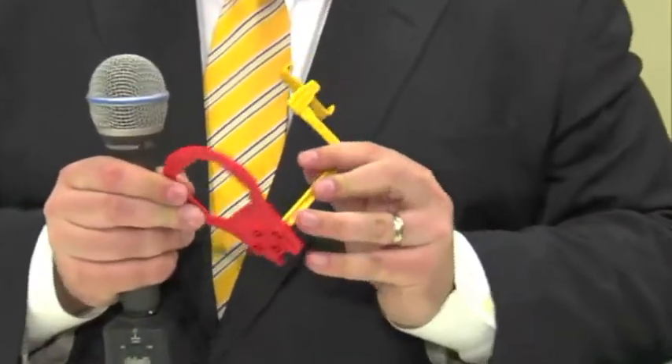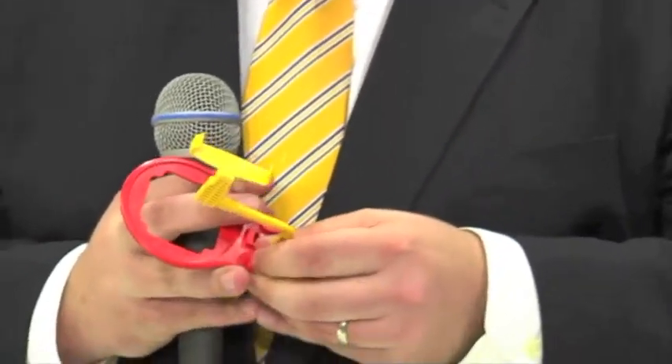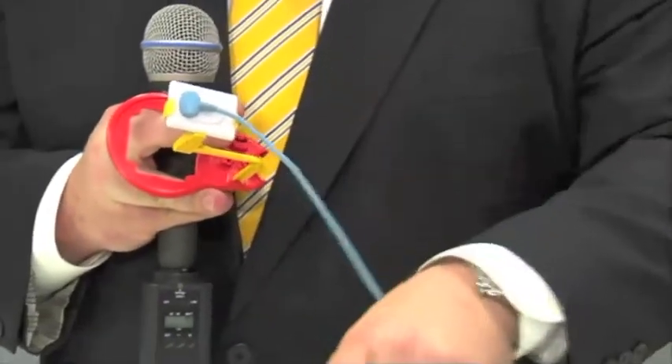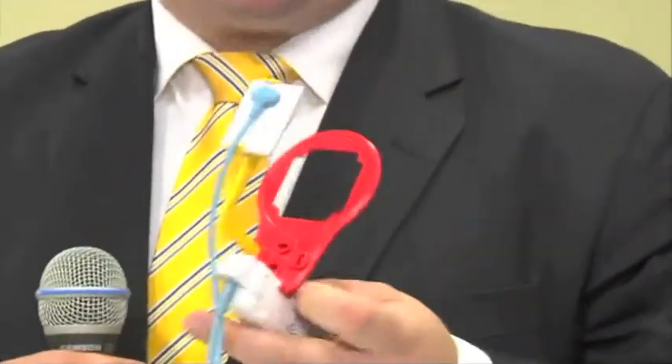In addition to the Wi-Fi system, it was launched in combination with the Schick Aim-Rite holder system — a unique key holder system that is simple and easy to construct, with the convenience of autoclavability. One great advantage is that it can simply be attached to the back of the Wi-Fi unit. While not optimal for all patients, it is particularly beneficial for patients with a gag reflex or difficulty accommodating a sensor in their mouth, as they can simply hold onto the system while imaging takes place, reducing gag reflex and providing peace of mind.